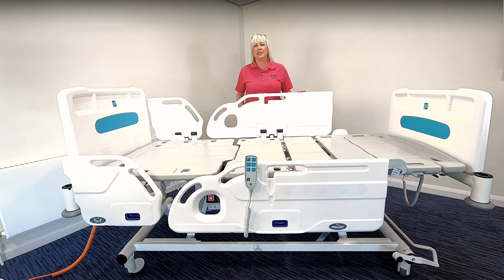On initial use of the bed, it's very important to ensure there are no obstructions or hazards around the bed space. You simply plug the mains lead into a power supply, ensuring that it does not cause a trip hazard. The bed is intended for use over the main supply. However, it does have a battery backup system that can be used in those times when a main supply is not available.